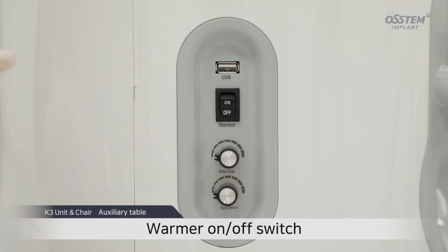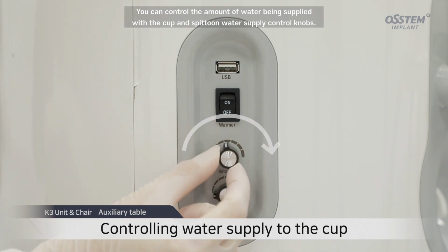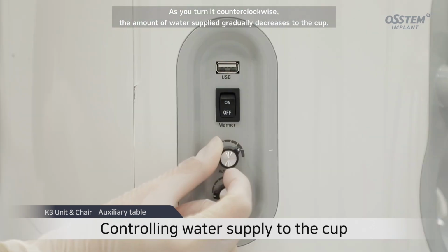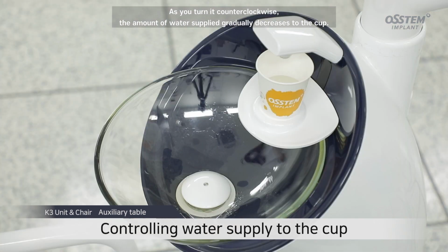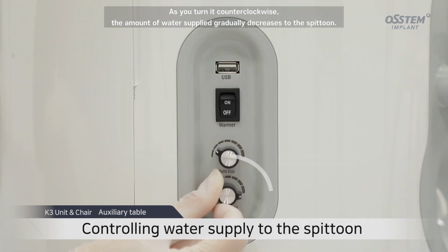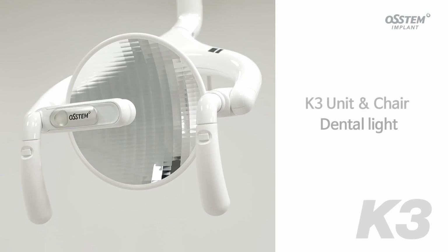You can control the amount of water being supplied with the cup and spittoon water supply control knobs. The more you turn it clockwise, the greater the volume of water that will be supplied. As you turn it counterclockwise, the amount of water supplied to the cup gradually decreases. As you turn it clockwise, the amount of water supplied to the spittoon gradually increases. As you turn it counterclockwise, the amount of water supplied to the spittoon gradually decreases.